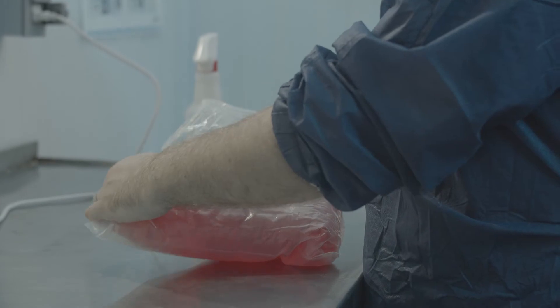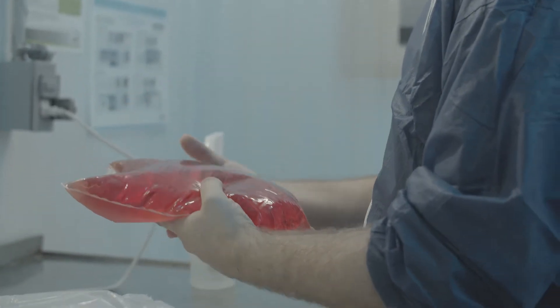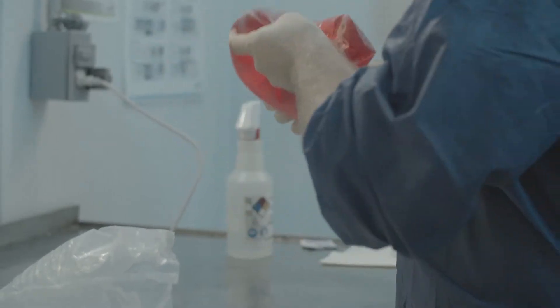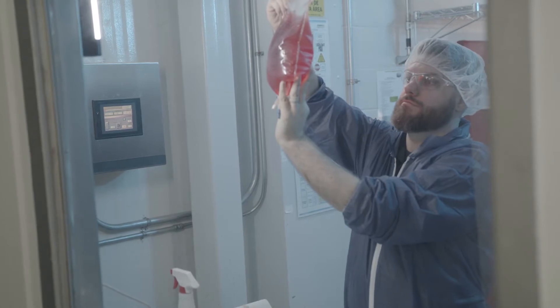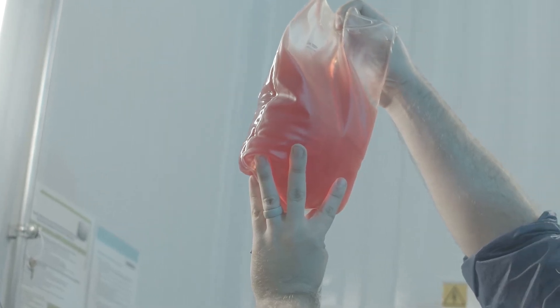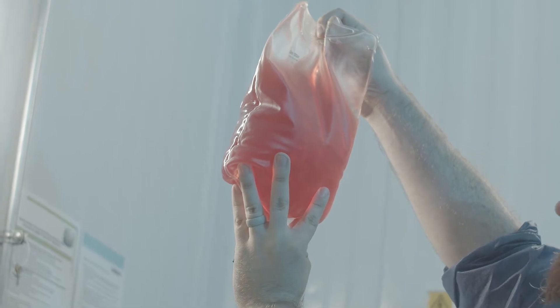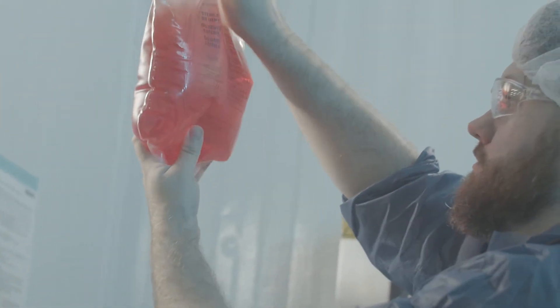Then allow time for the water to reach a temperature of 80 degrees Fahrenheit (27 degrees Celsius). Diluents should be used at room temperature. Be sure to follow manufacturer recommendations for vaccine use as well as guidance by your veterinarian. Inspect diluent for clarity — use only clear diluents when preparing vaccine and discard cloudy diluents. If a diluent appears damaged, stop using immediately and notify your supplier.